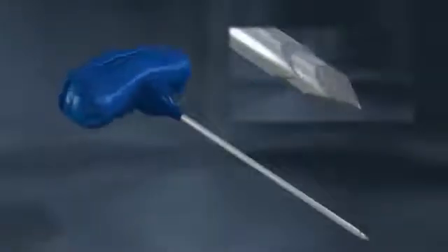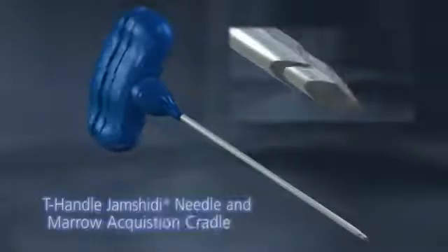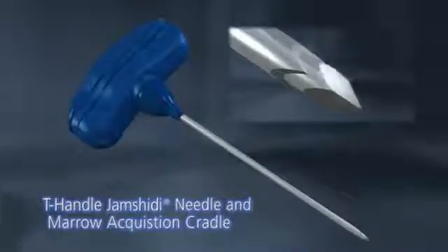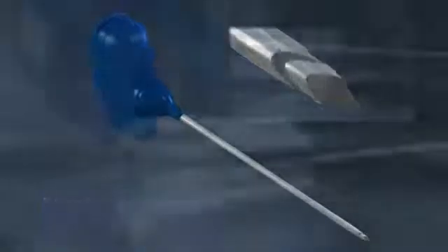Now, let's take a look at the advanced technology of another option: the T-Handle Jamshidi Bone Marrow Biopsy Needle with Crown Tip and Marrow Acquisition Cradle.